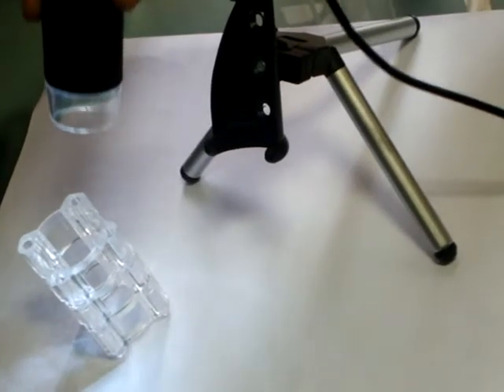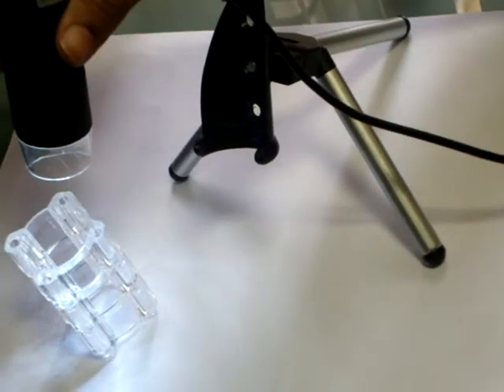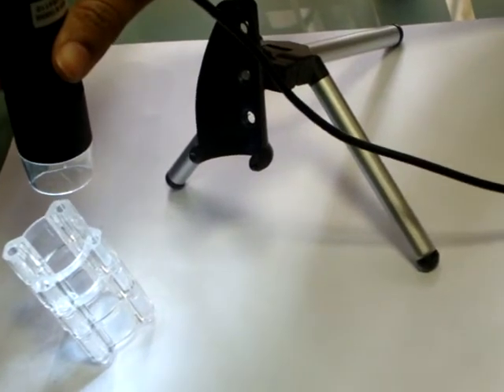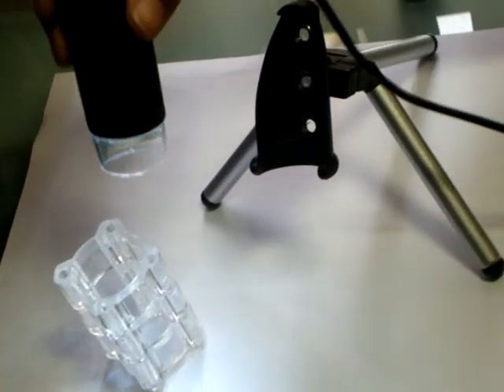You can also use the stand provided with the dermascope. This is how to fit it, a brick stand.